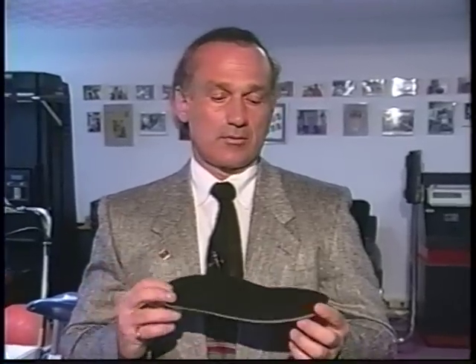The second important feature of this orthotic is the adjustability. Post materials are added to the orthotic device, and you can adjust them as the patient gets used to the device and reports back symptom relief. The third important feature is that controlling pronation combined with adjustability leads to increased compliance of use by the patient. And the last feature is the cost — the orthotics are definitely within reason for the patient compared to sending it off to a lab.